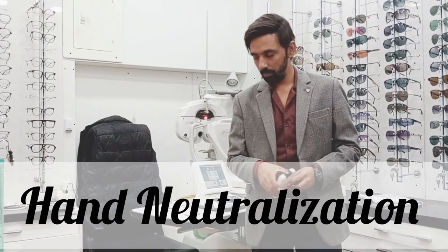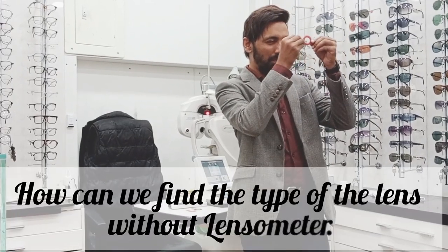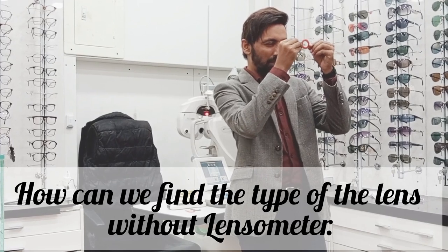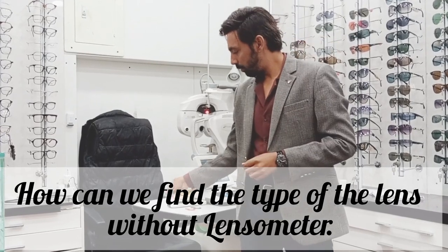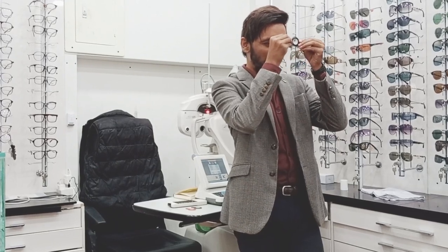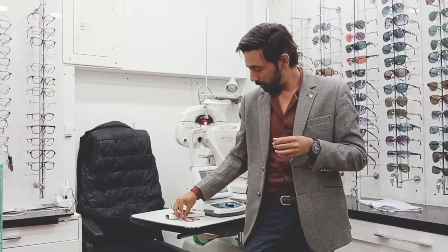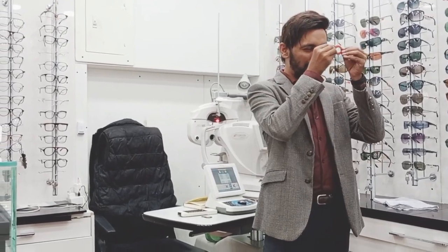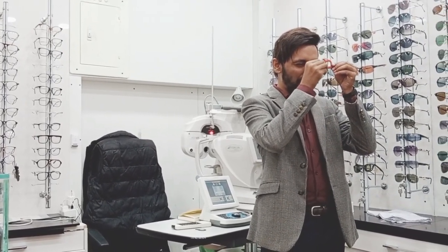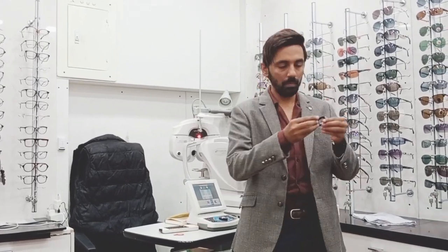Today's topic is hand neutralization. The question is: how can we find the type of a lens without a lensometer? For example, if a patient comes into your clinic and you do not have a lensometer, how will you determine whether the lens in the spectacles is spherical or cylindrical, plus or minus? This video is all about hand neutralization.